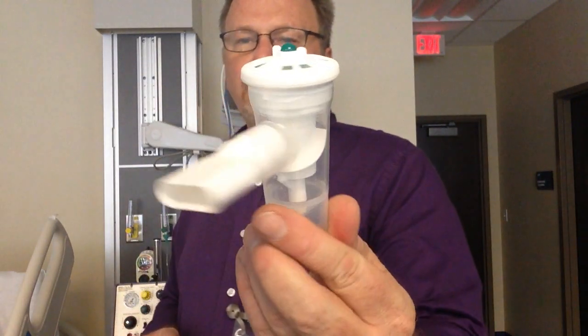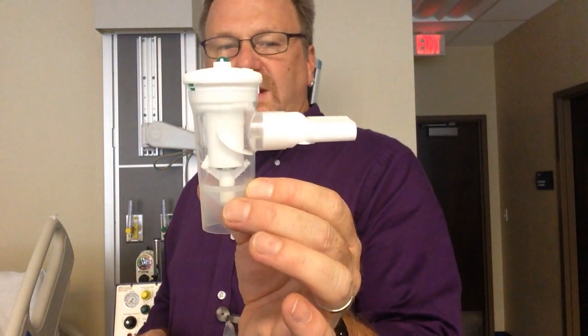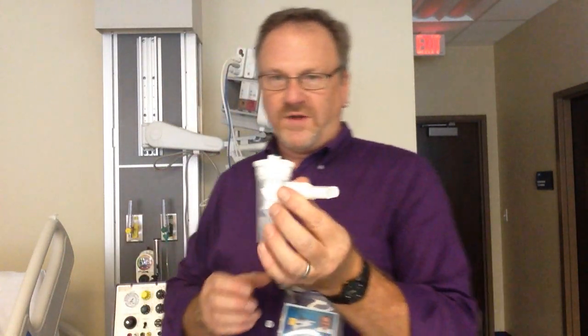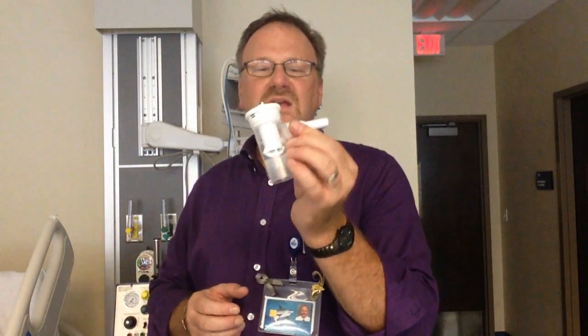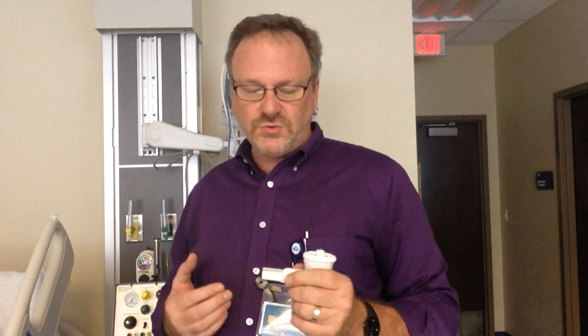This is also a small volume nebulizer. It is called a breath actuated nebulizer. The brand name is AeroEclipse. The advantages of the breath actuated nebulizer are no wasted medication and no exposure of medication to the therapist. You may think it's just a little albuterol. There are actually studies out there showing that respiratory therapists who have been in the field a long time may have pulmonary issues due to constant exposure to secondhand medications.